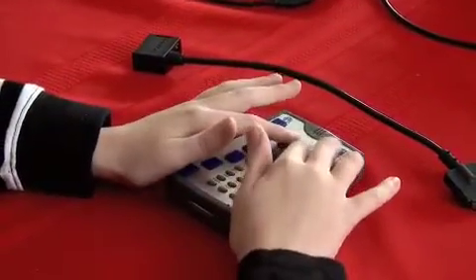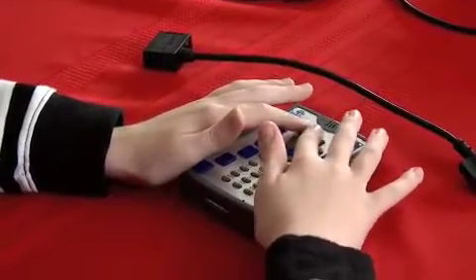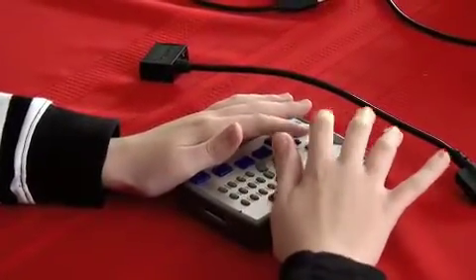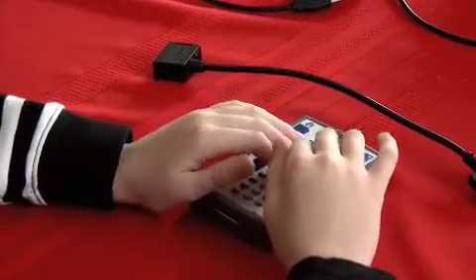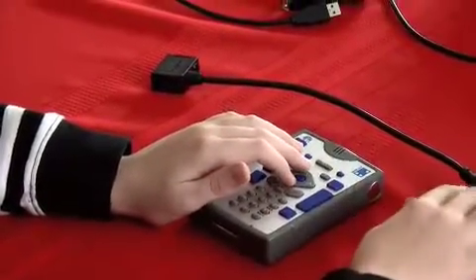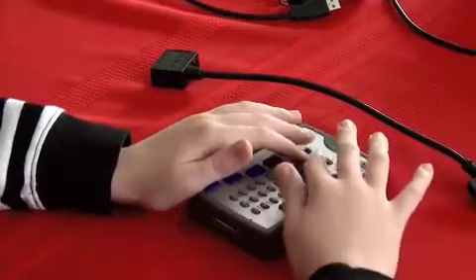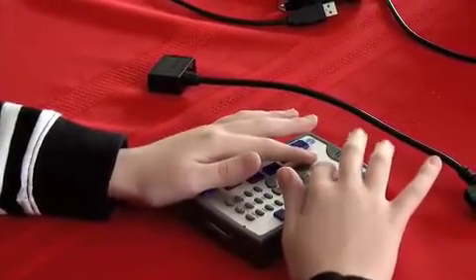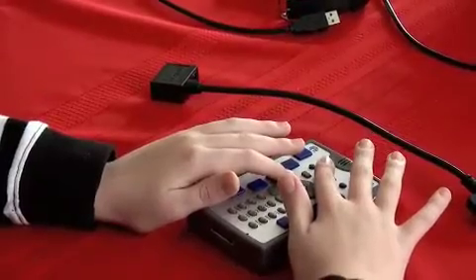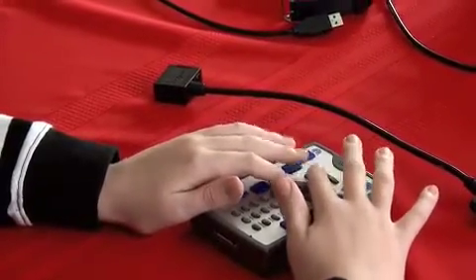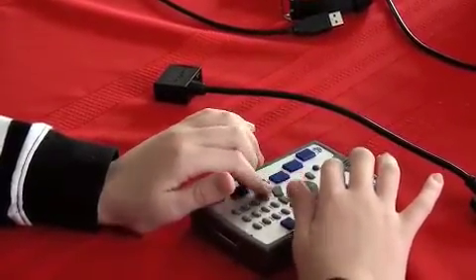The key beside that is called the Applications key. If you press it right now, you will hear Applications menu, and we were actually already in the Applications menu, so it didn't do anything. No matter what program you're in, you can tap this key and you're back to the list of programs and you can open another program. If you hold the Applications key, it'll bring up the Task Manager, so you can run and stop different programs.